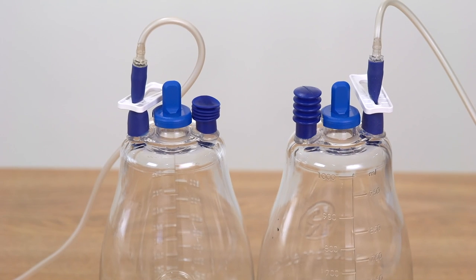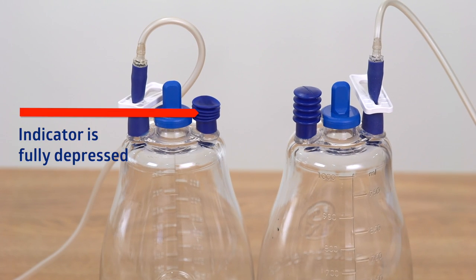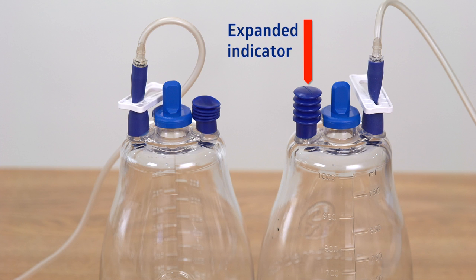The blue vacuum indicator should be completely depressed, indicating that the bottle is fully evacuated. If the indicator has expanded, discard the bottle and replace it with a new one.